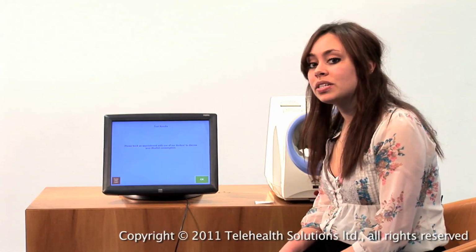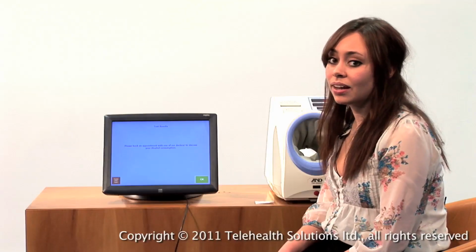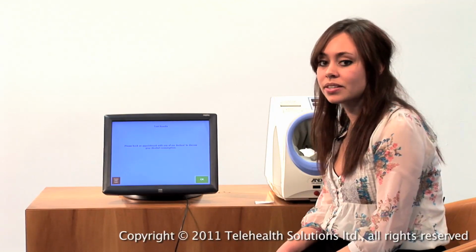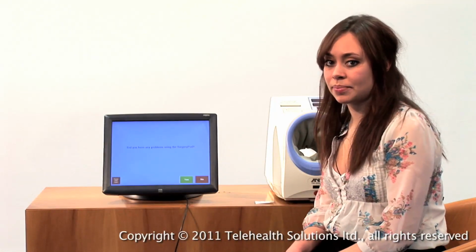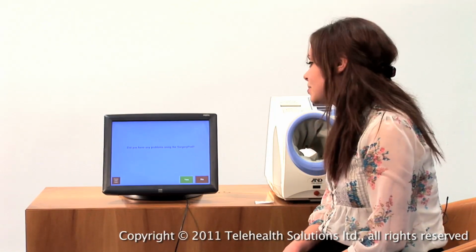Now, because we put in a very high figure for alcohol earlier on, what's come up here is a warning about my alcohol consumption and encouragement to go and book an appointment about it. Again, like the smoking, this is something that is read-coded across to the patient management system, so the clinicians are aware that this has been noted. Once you press OK, the word submitting comes on, which means that all the records that you have just entered have gone across to the patient management system.